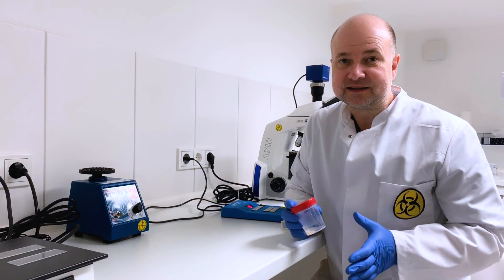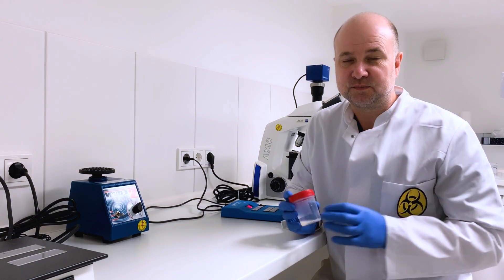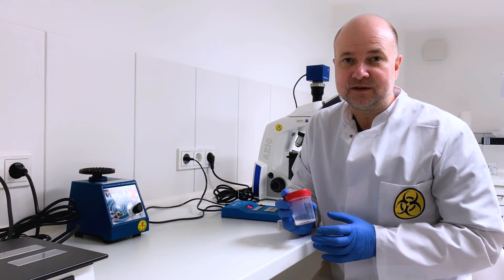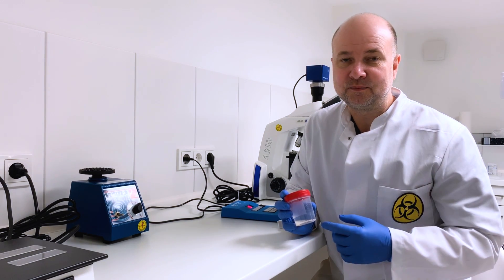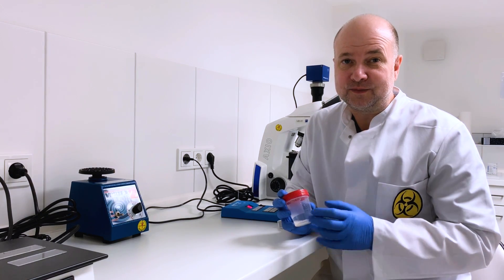In semen analysis it's quite easy to make mistakes and one of the biggest mistakes that you can make is that the sperm is not evenly distributed inside the sample and I'm always very diligent in mixing up my samples so that I don't fall into this trap.